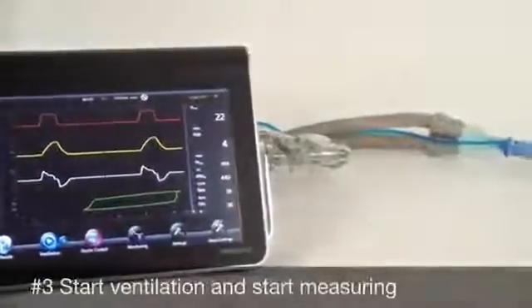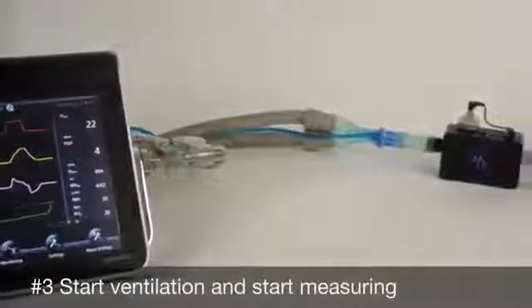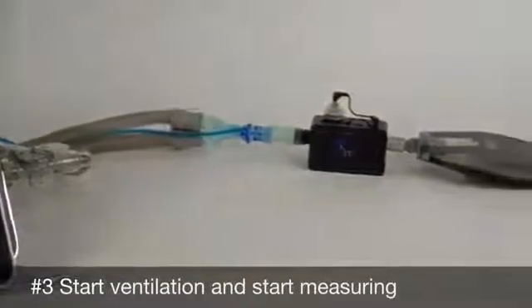Now, start ventilation and wait approximately 5 breaths until measurements are stabilized.